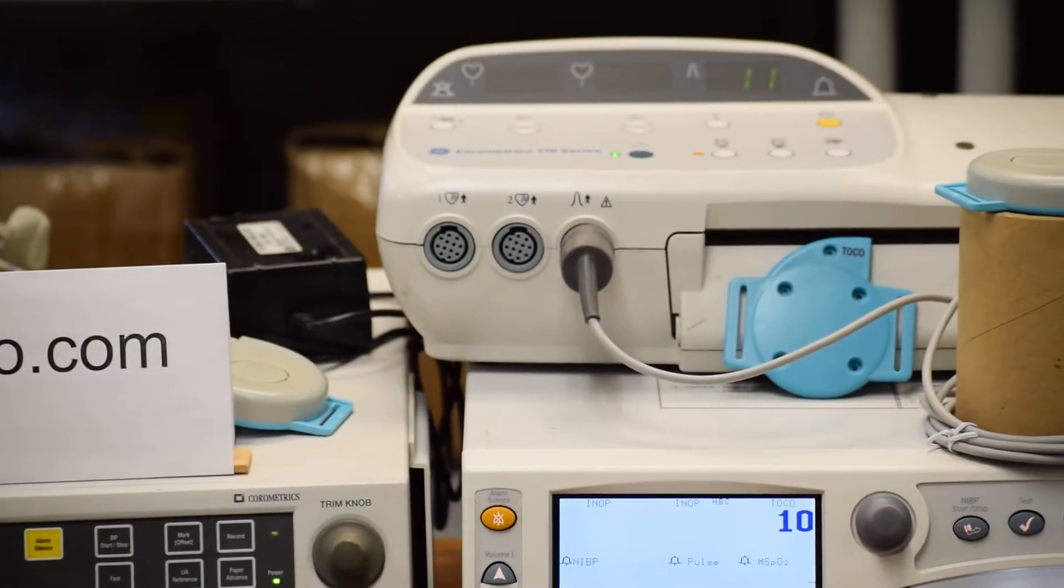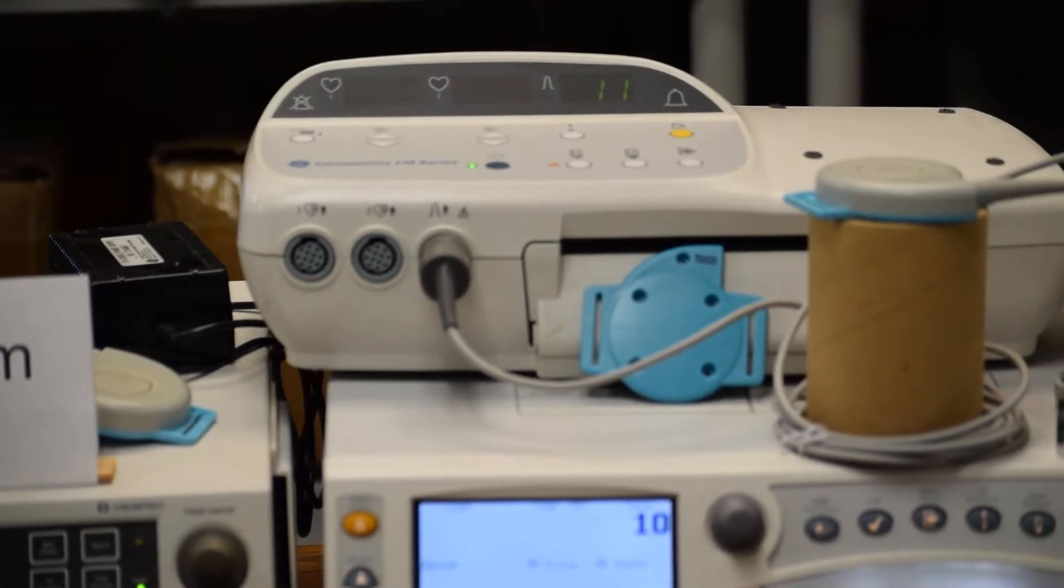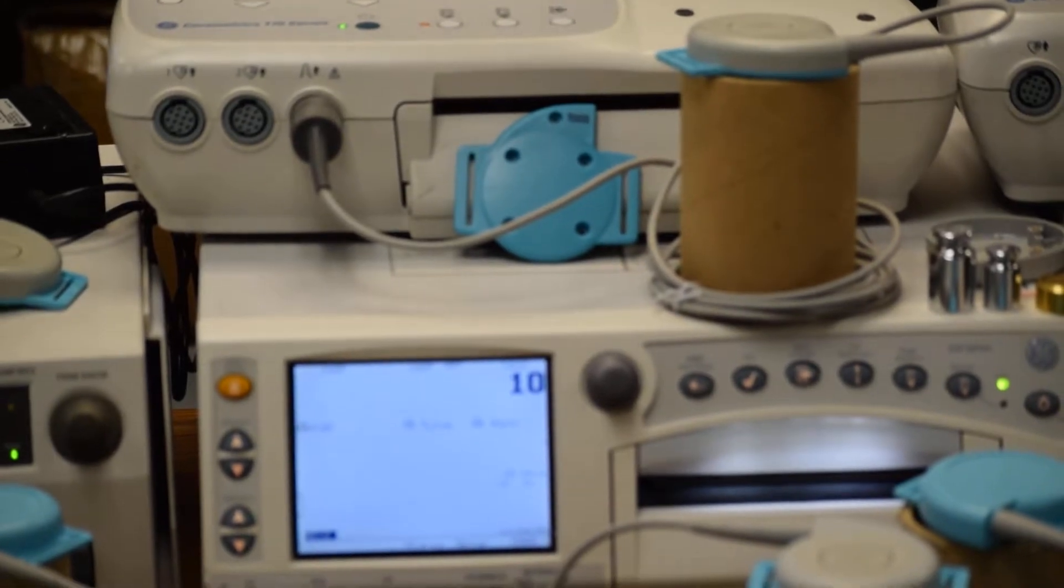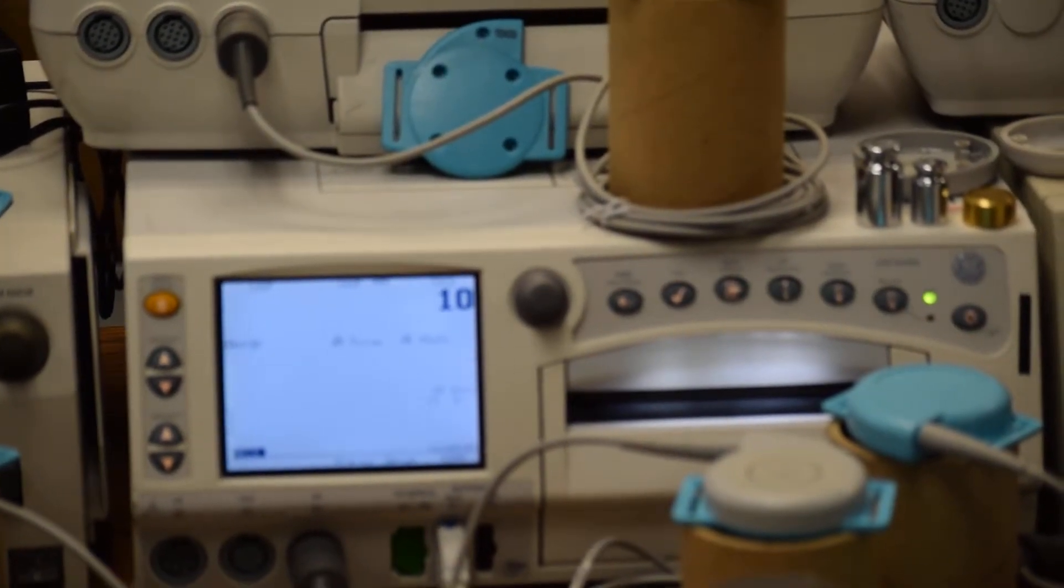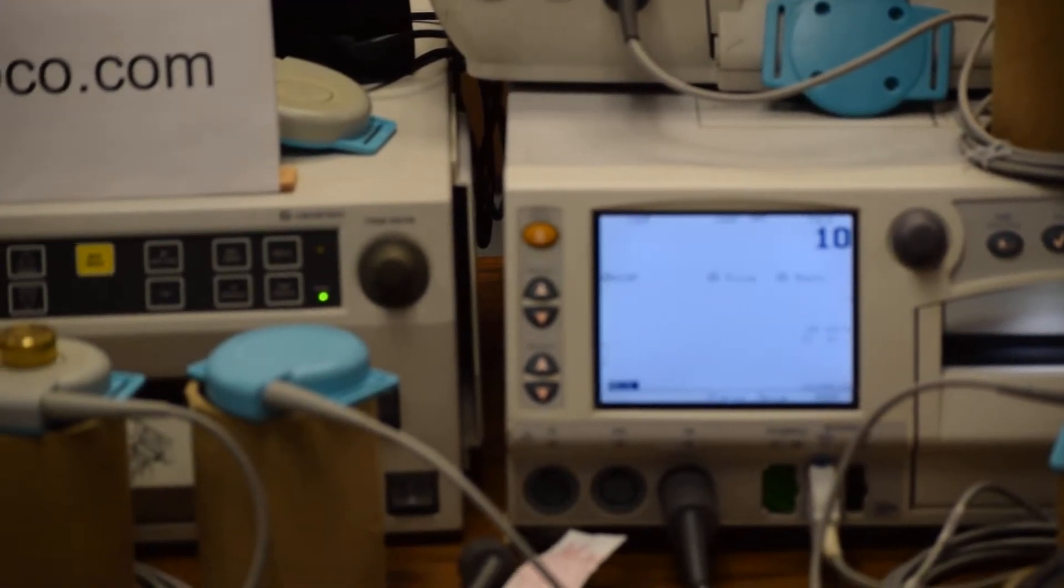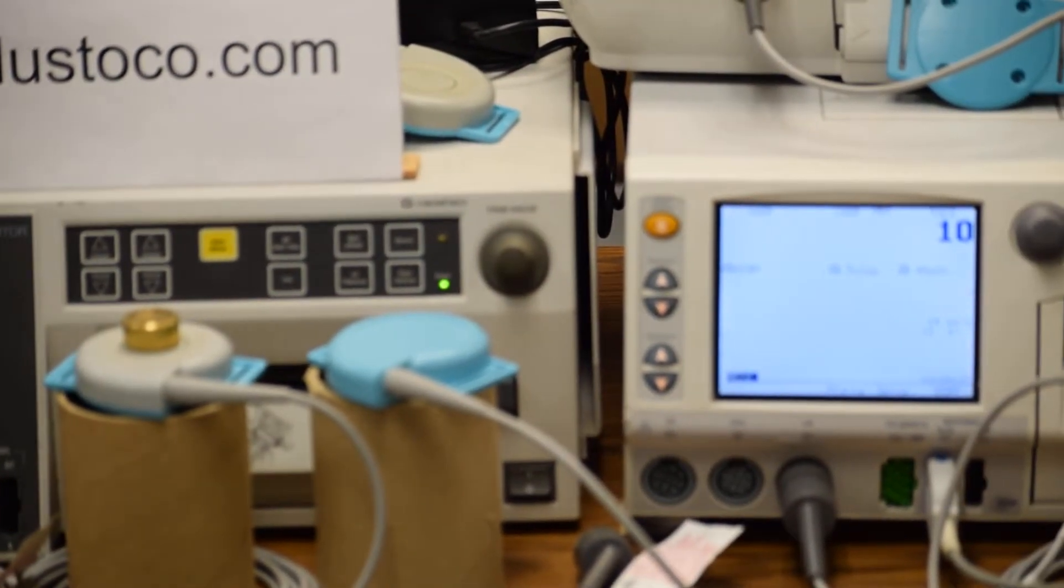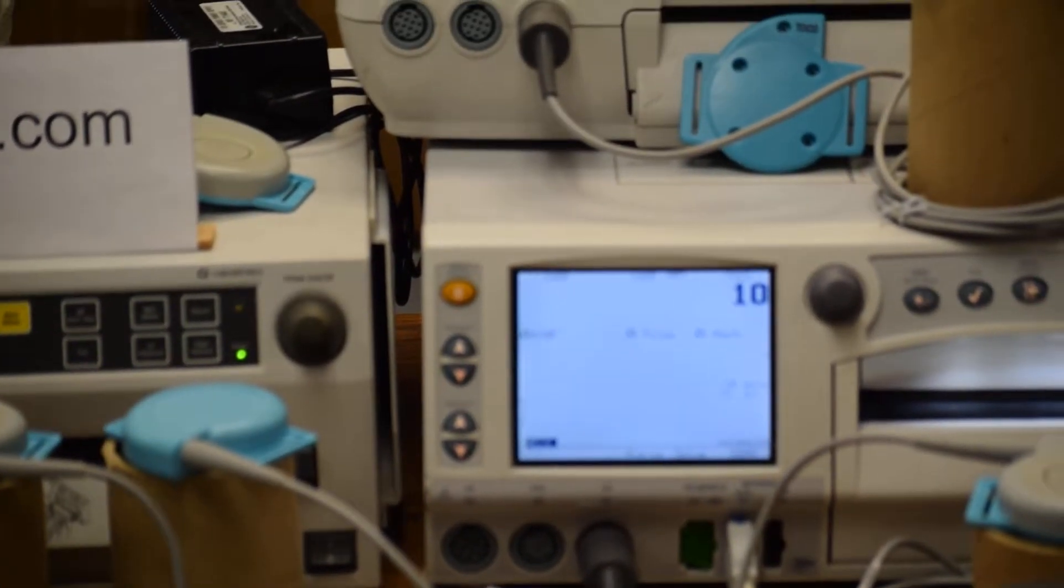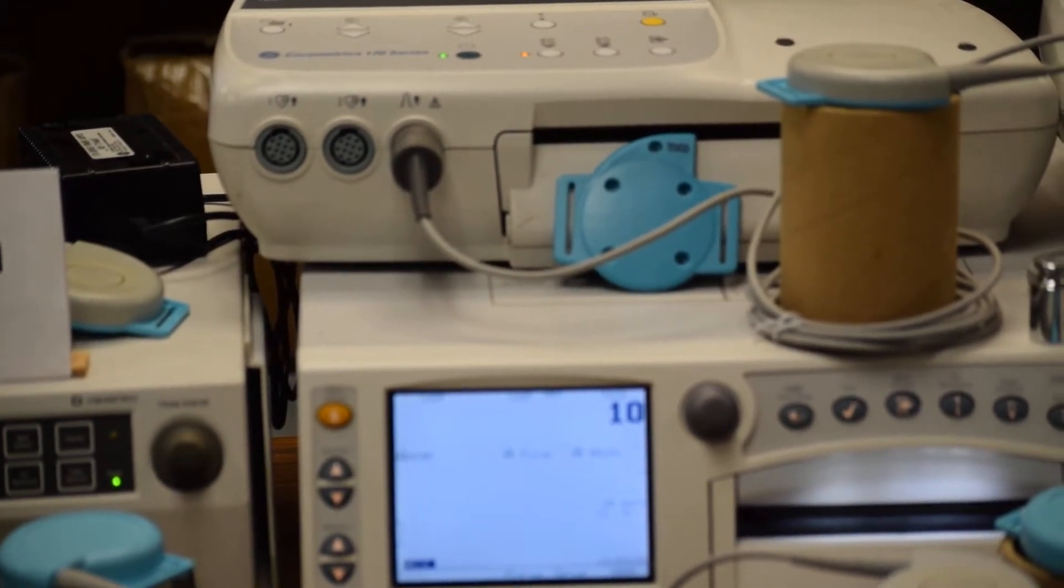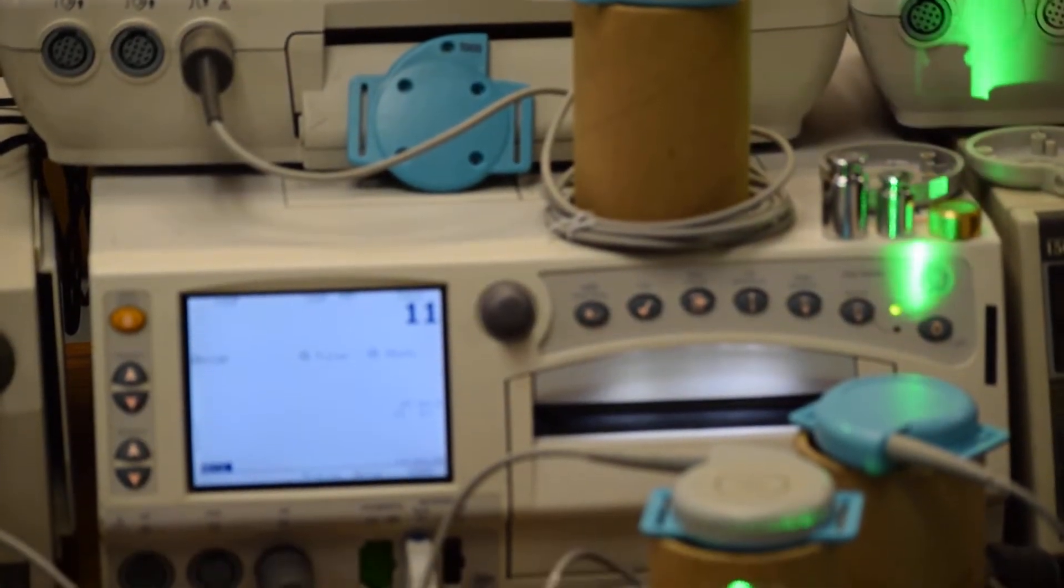Crystal bonding is used for ultrasound transducers of fetal monitors. What you see in this video are GE corometrics fetal monitors: in the center is model 250 series, on left is 120 series, on right is 150 series, and on top are two portable 170 series monitors. The many different transducers you're seeing, the one we're going to explain is the gray color ultrasound fetal transducer.